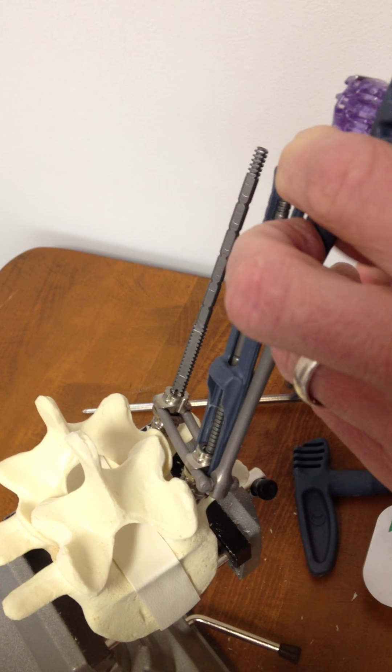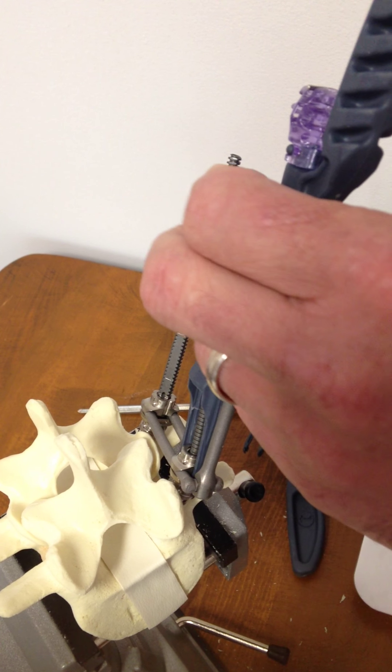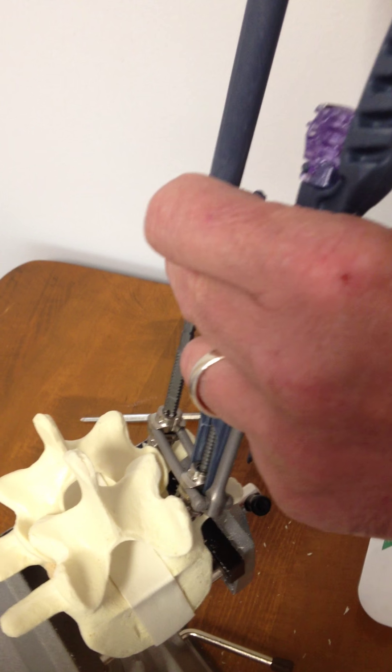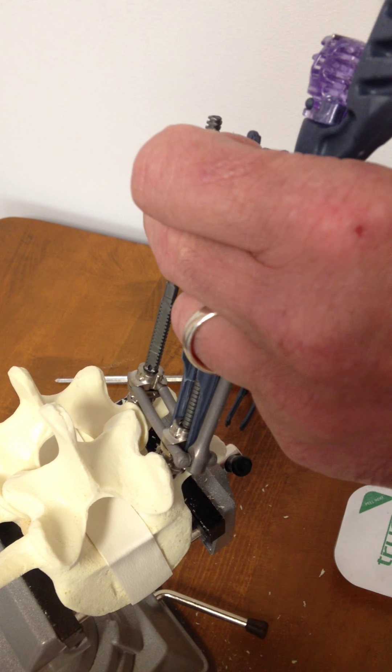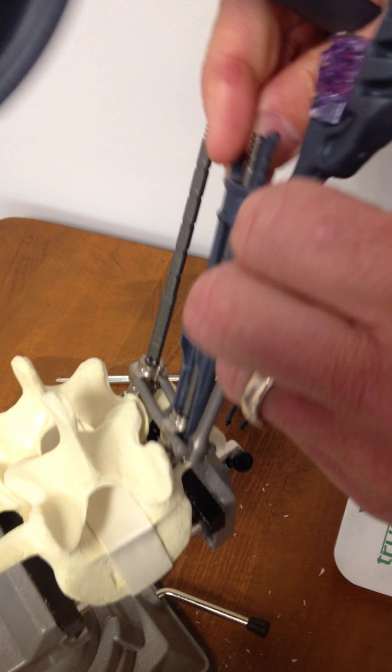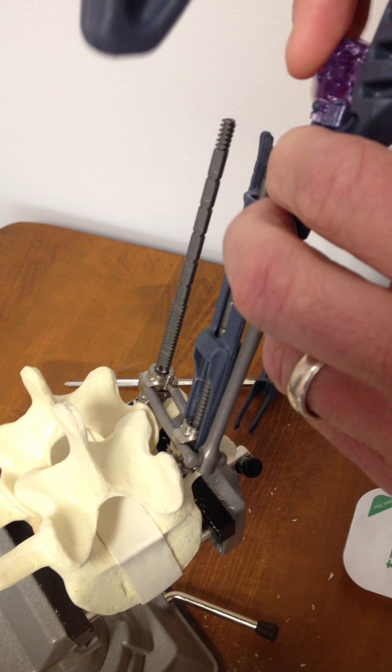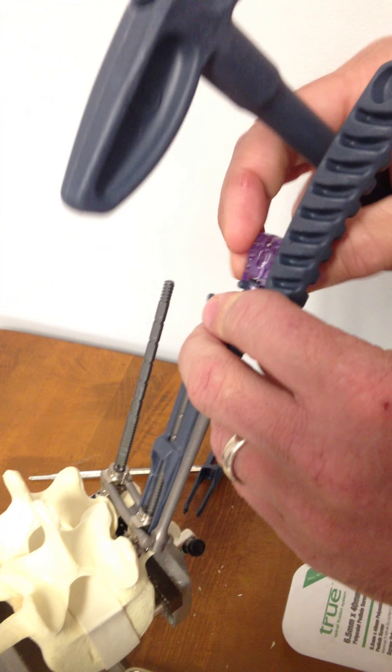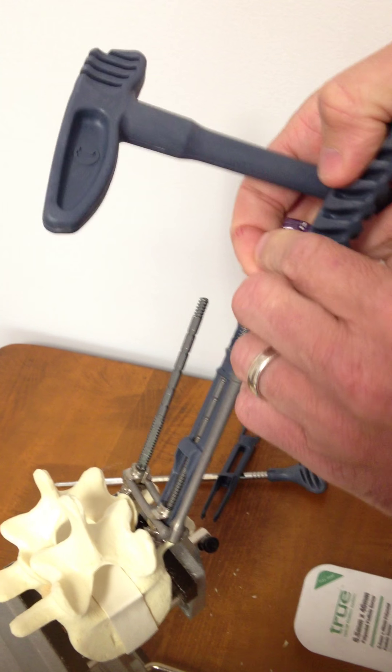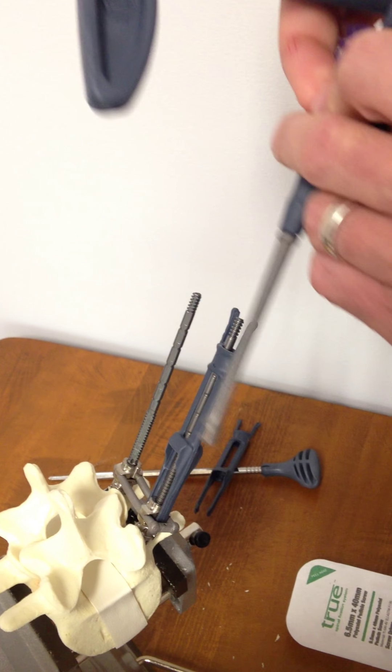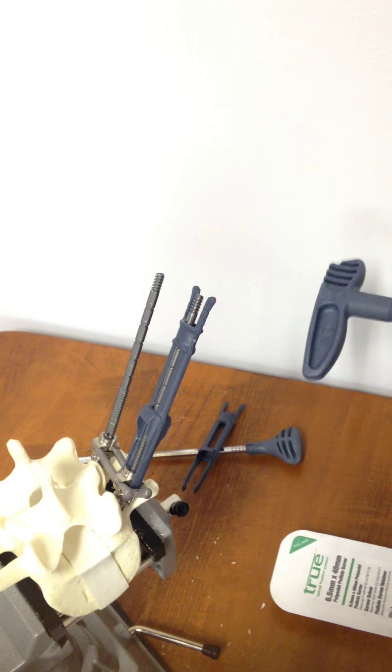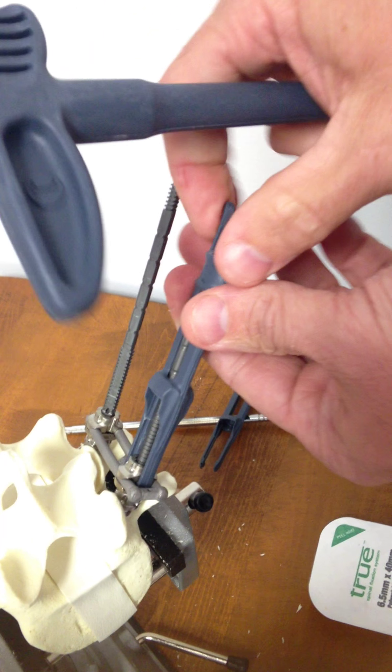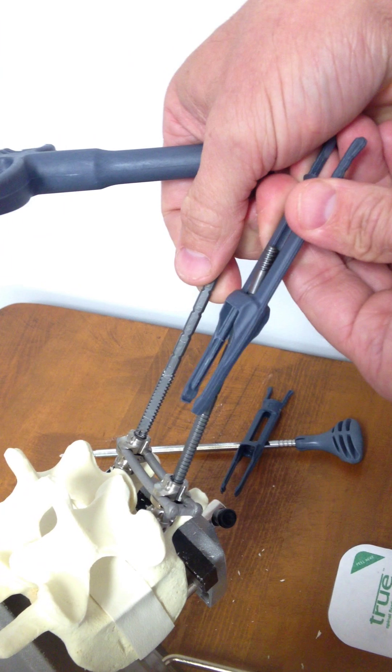And then with a little wiggling motion, I'm going to pull the retaining portion off of the first, and I'm going to tighten that down just finger tight. And then I'm going to bring my rod delivery handle out, so I'm going to take my quarter turn here. The release wire is going to come out. This handle will be removed.